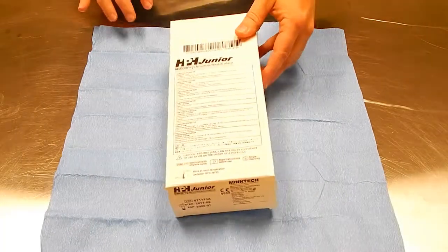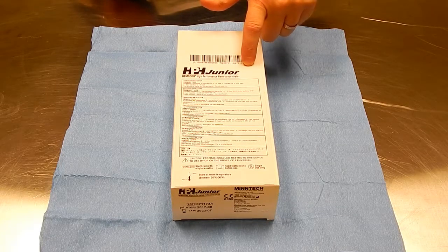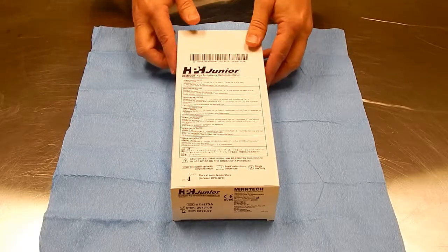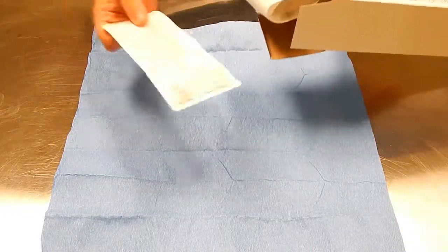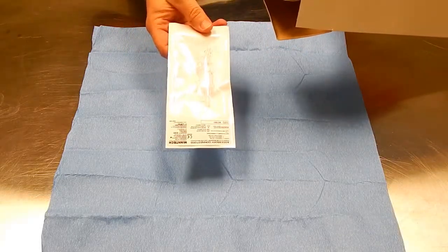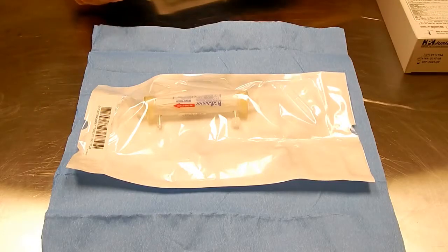I'm going to go over a couple things for you. The Hema Concentrator comes in the FC120Pure kit. This is how it comes if you just wanted to get the Hema Concentrator by itself. These are some connector accessories that are designed for tube sets — we don't use these in our kit, so they are not needed. The Hema Concentrator itself comes in its own sterile package.